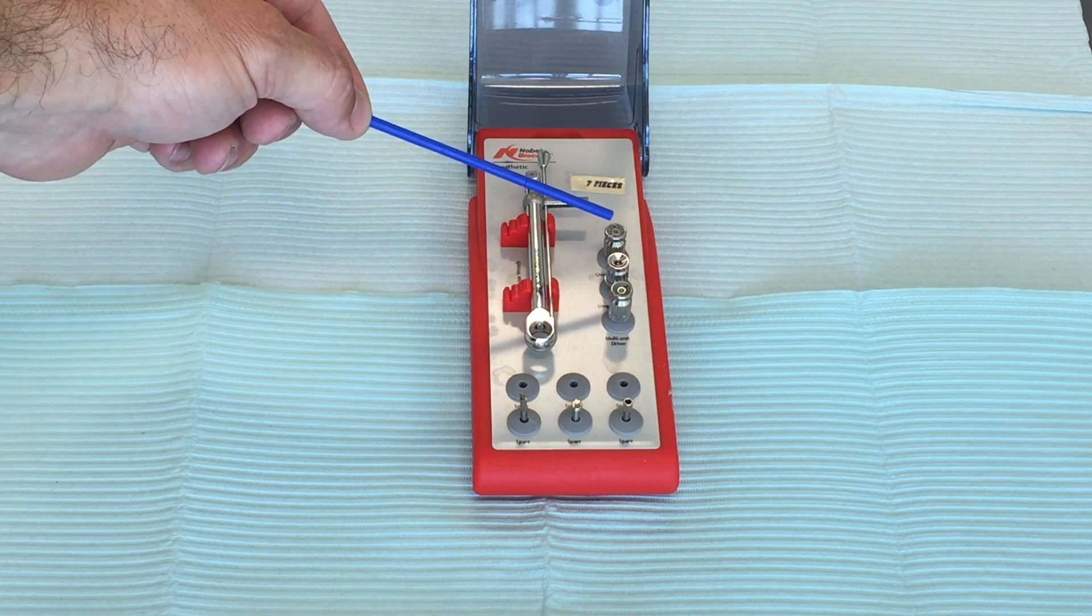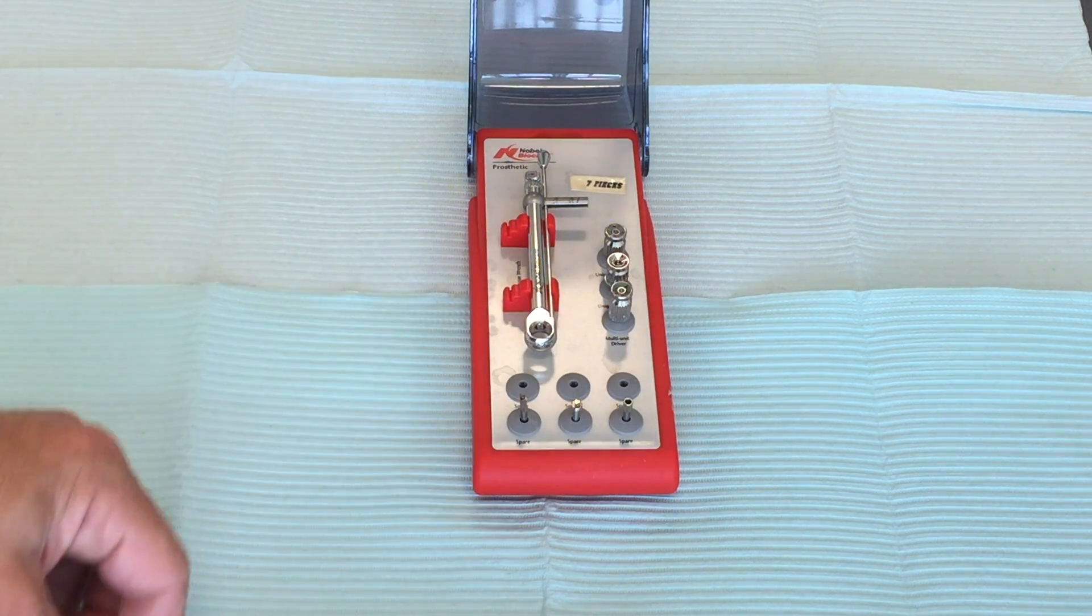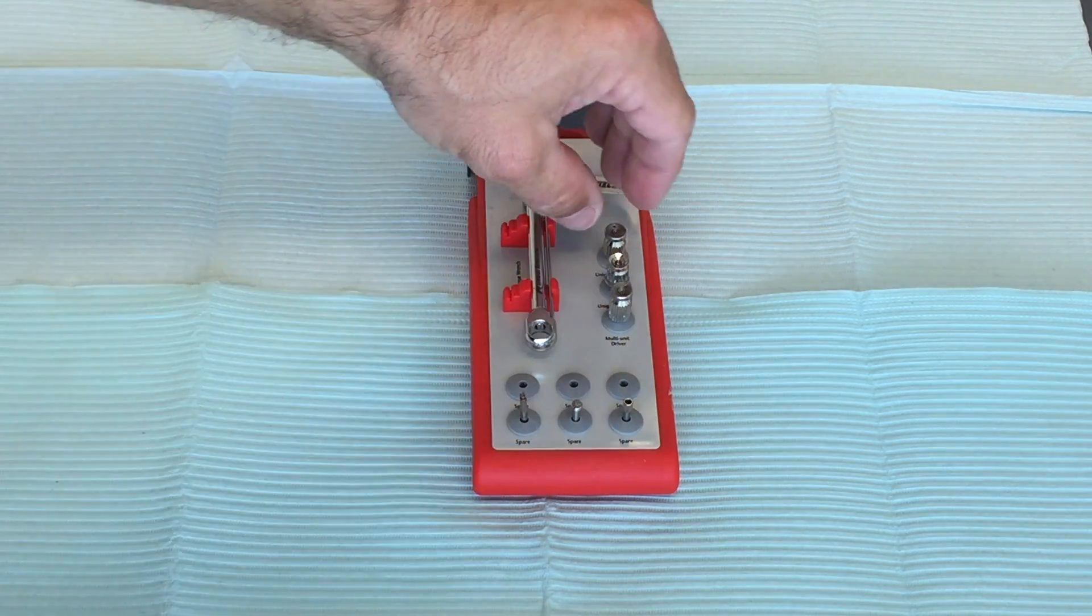You've got the torque wrench itself, along with three different lengths of drivers. You're going to have a short, medium, and a long one.